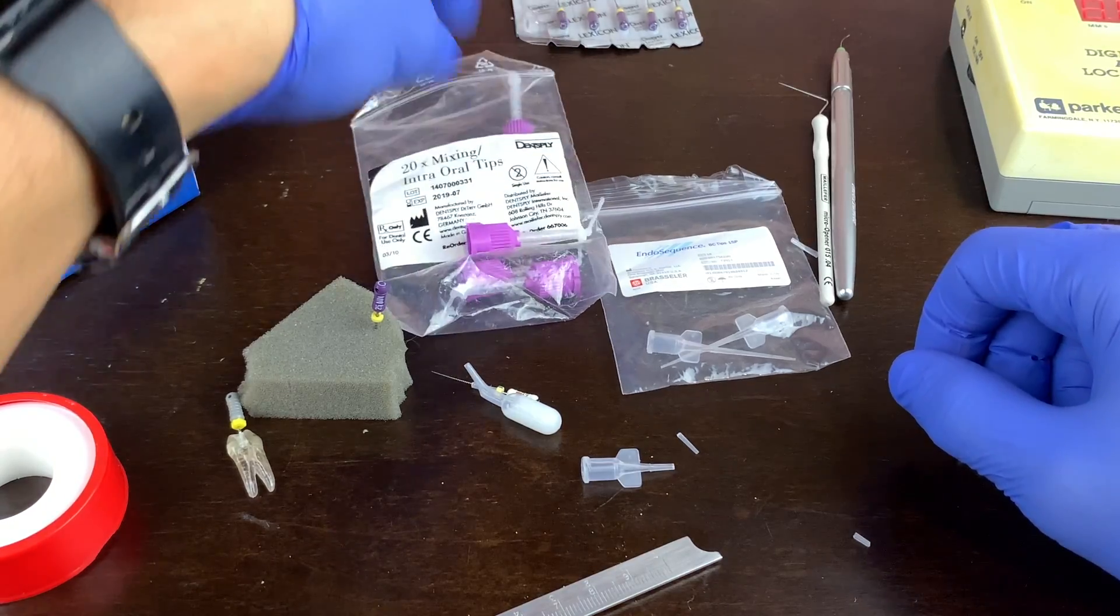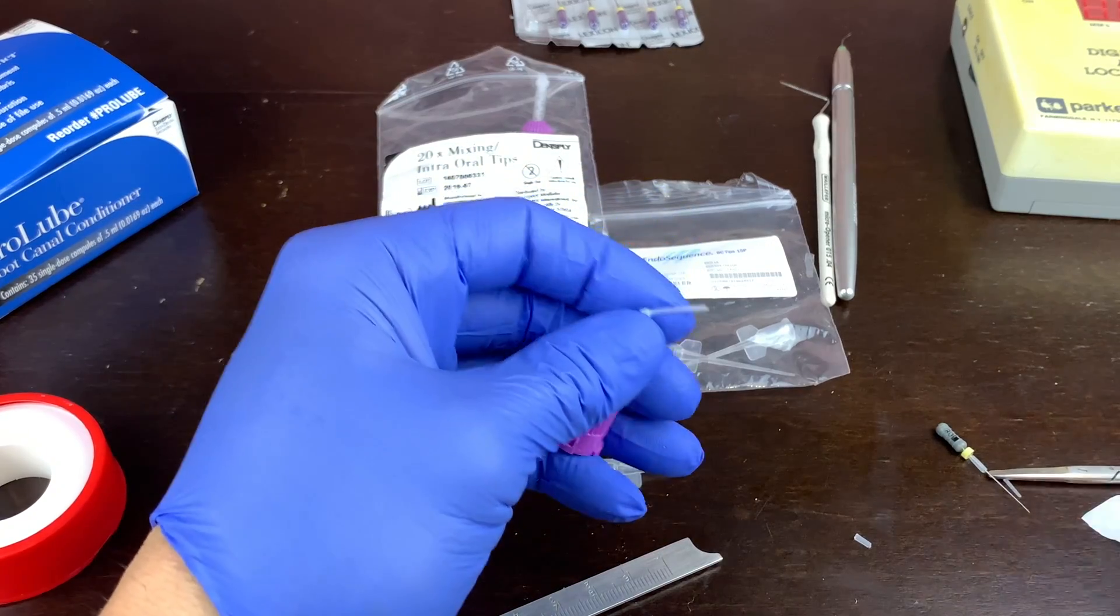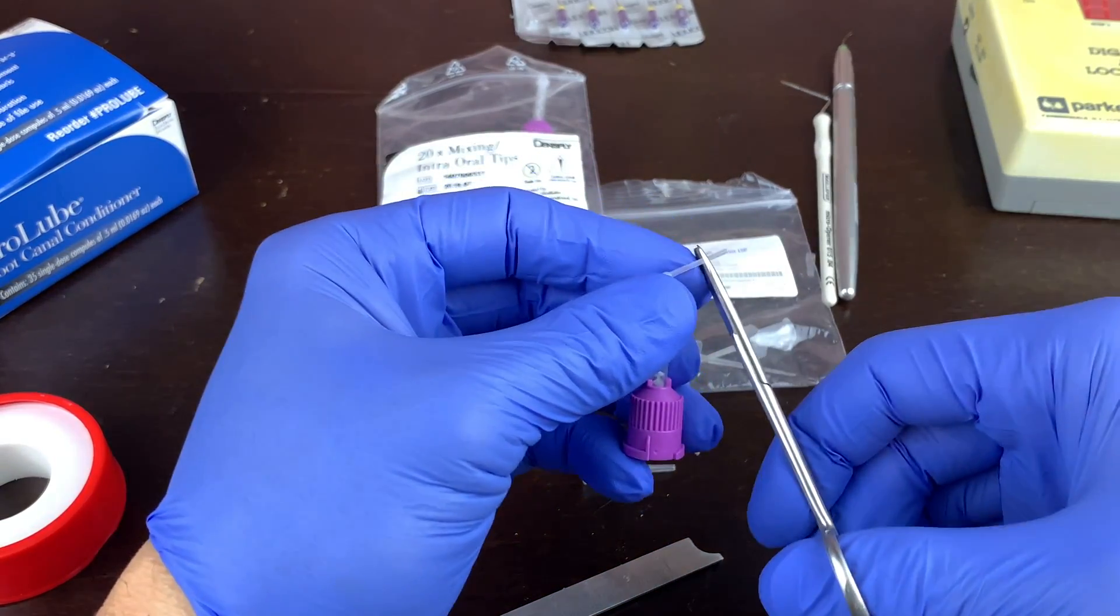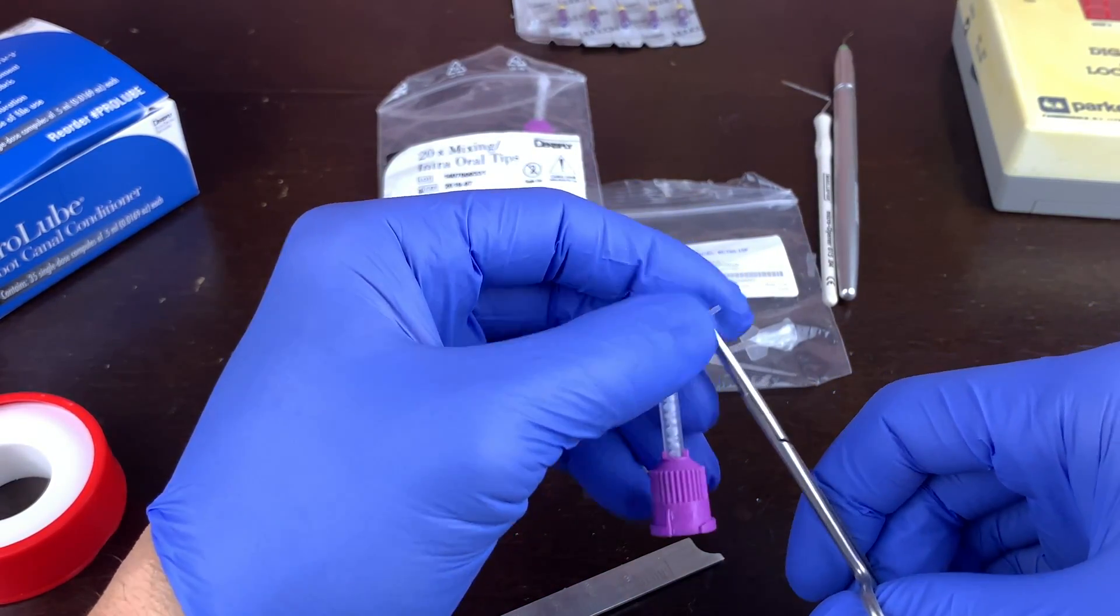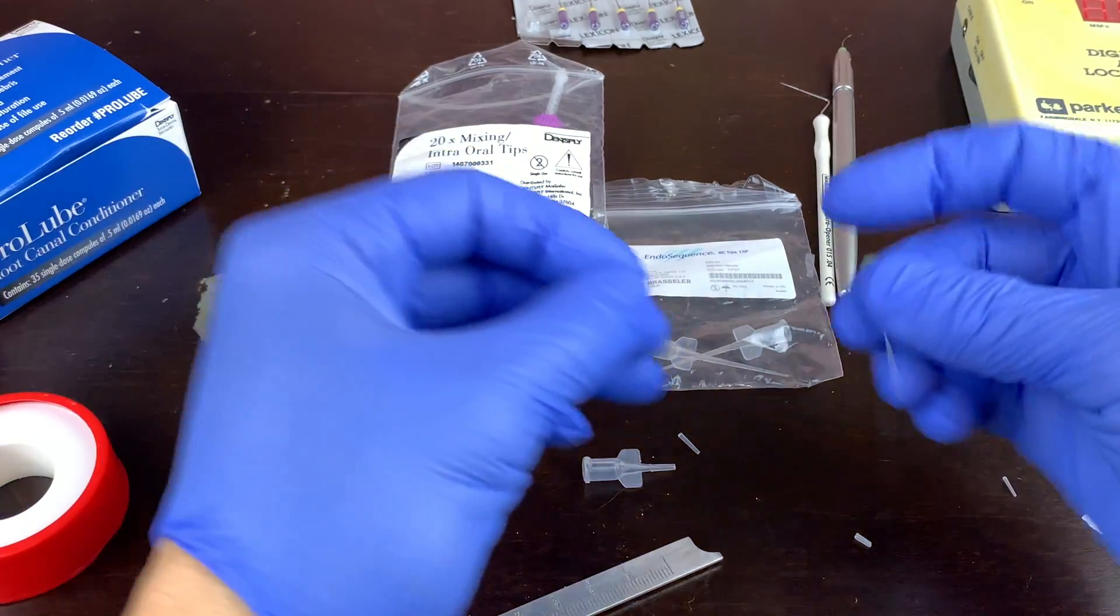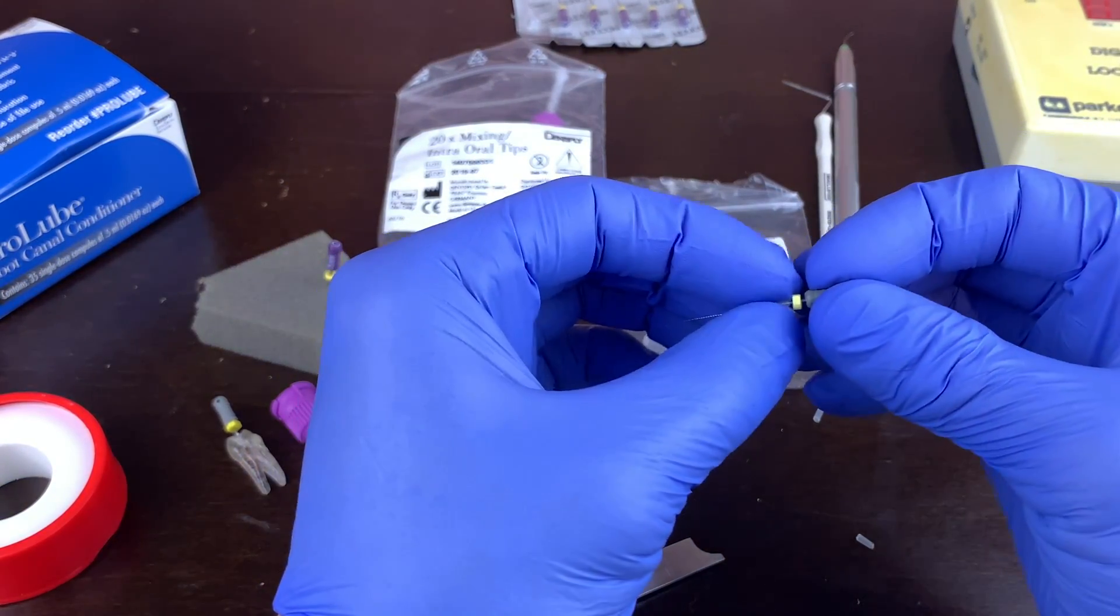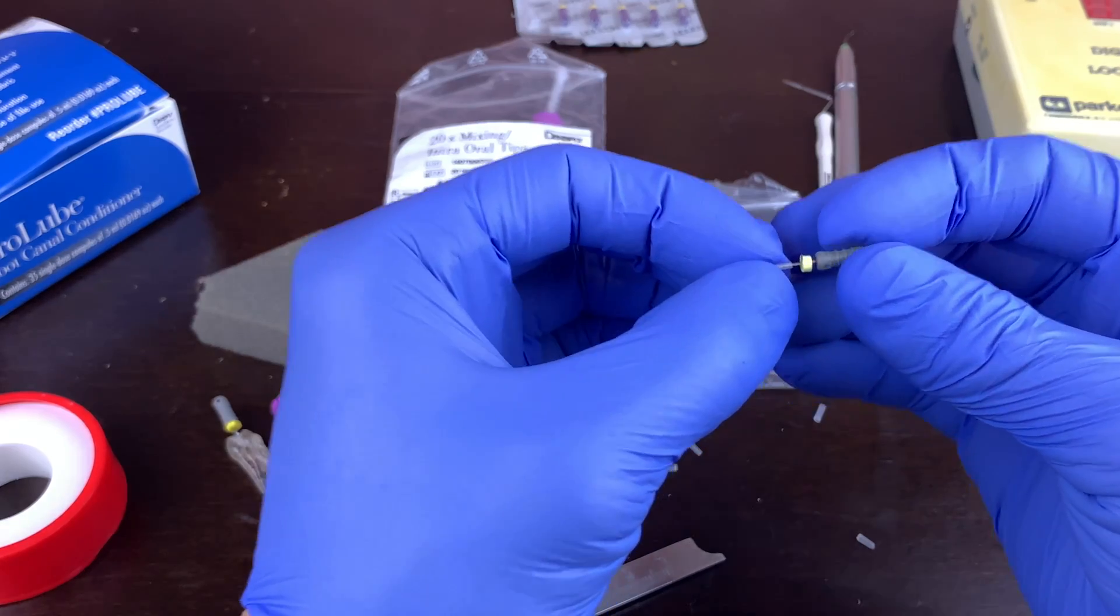If you're placing posts, you have these little mixing tips. So I found these floating around and I figured let's give it a shot. So sure enough, let's cut a little piece. And it worked just dandy. That's a beautiful word. Look at that. Booyah.